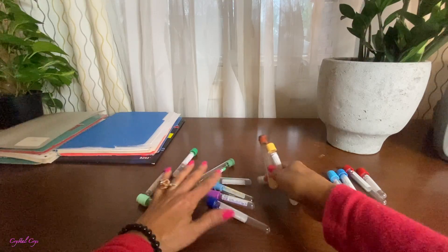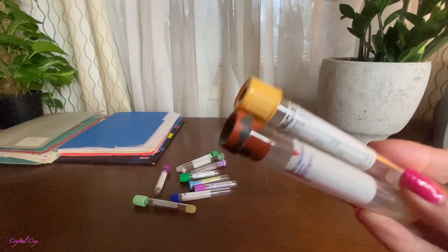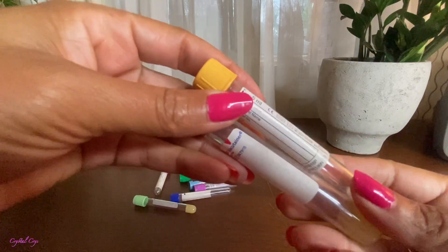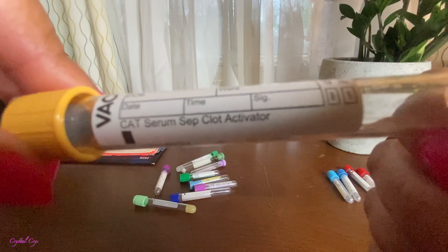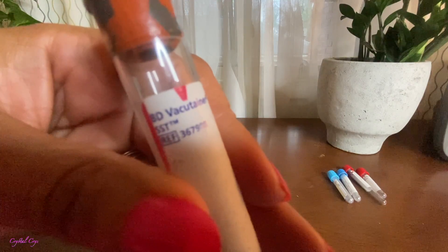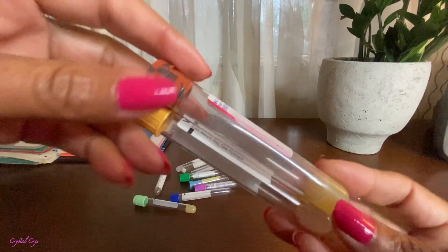Gold — yes. Now that's not the color gold, and we always put these two together because they're serum separator tubes. Please know that. These tubes are the same; don't let anyone tell you that these are not the same tubes. When I say the same, I mean they give you the same result. This one tells you serum separator with the clot activator, and this one basically just says SST, which is a serum separator tube. You're going to get serum when you use these tubes because they have the clot activator in them, and they're going to separate the serum from the blood.